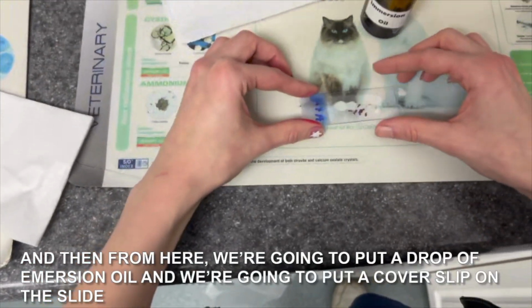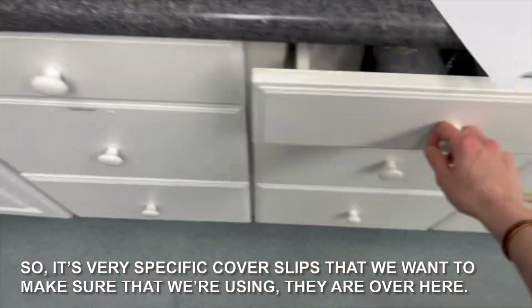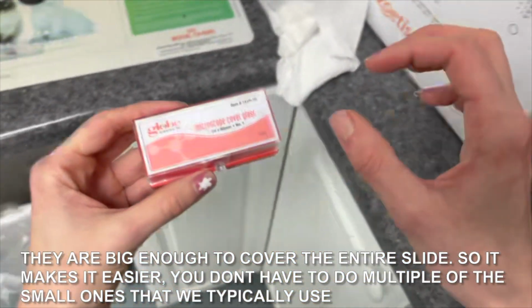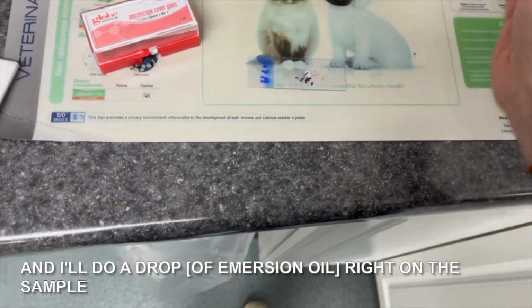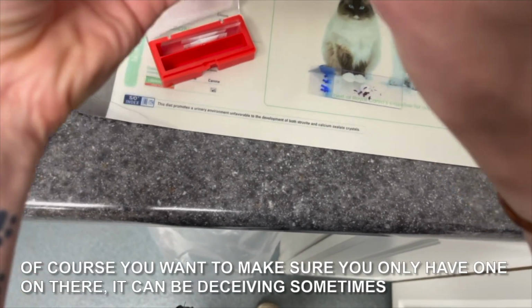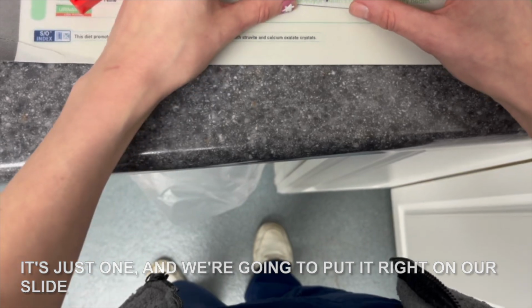And then from here, we're gonna put a drop of immersion oil, and then we're gonna put a cover slip on the slide. So it's very specific cover slips that we wanna make sure that we're using. They're over here. They're big enough to cover the entire slide, so it makes it easier. You don't have to do multiple of the small ones that we typically use. And I'll do a drop right on the sample. And then we'll get our cover slip. Of course, you wanna make sure you only have one on there. Can be deceiving sometimes. It's just one, and we're gonna put it right on our slide.